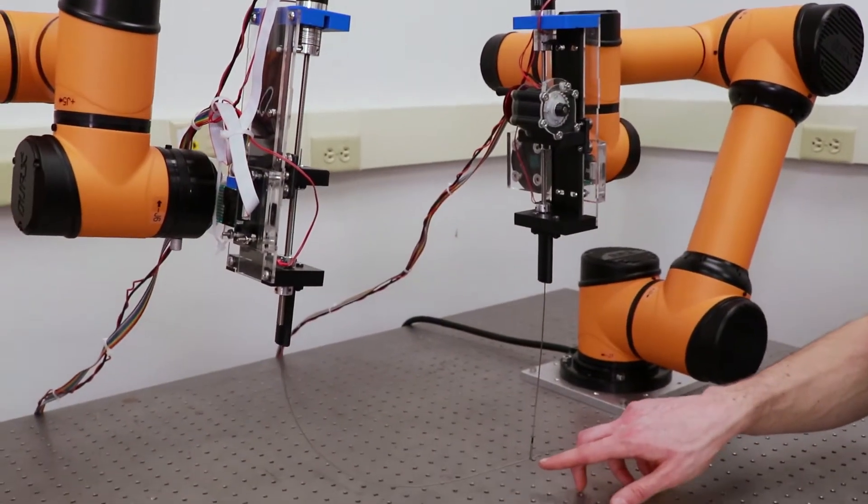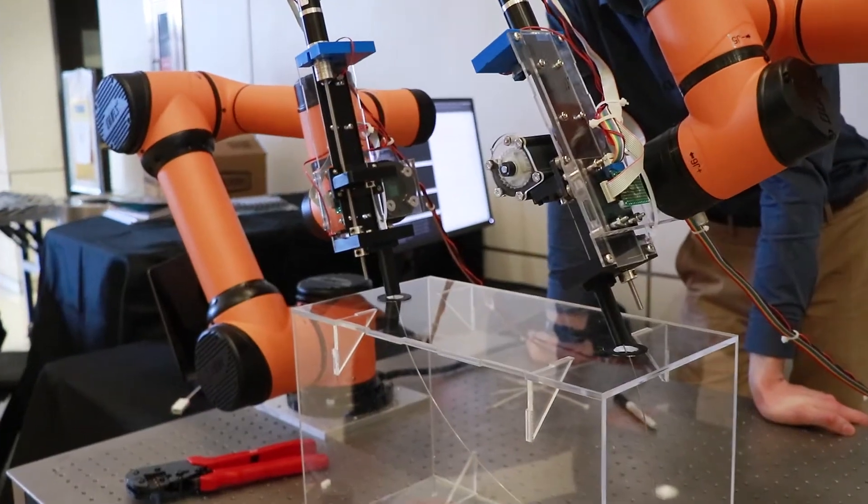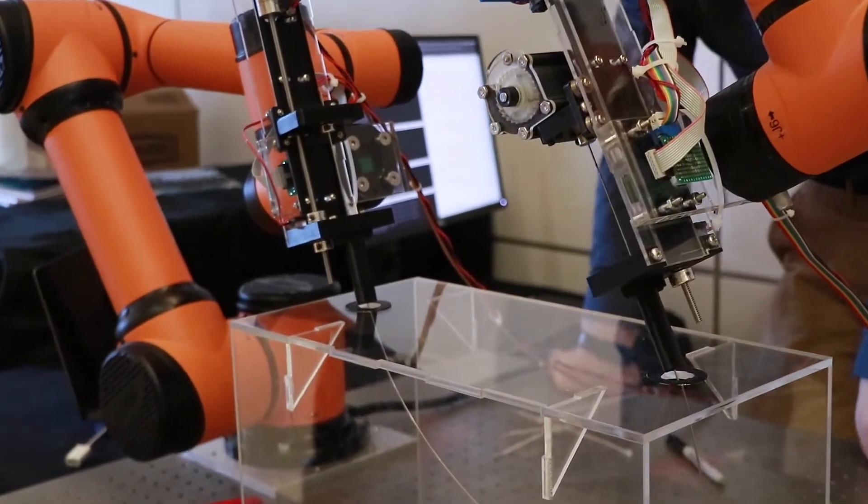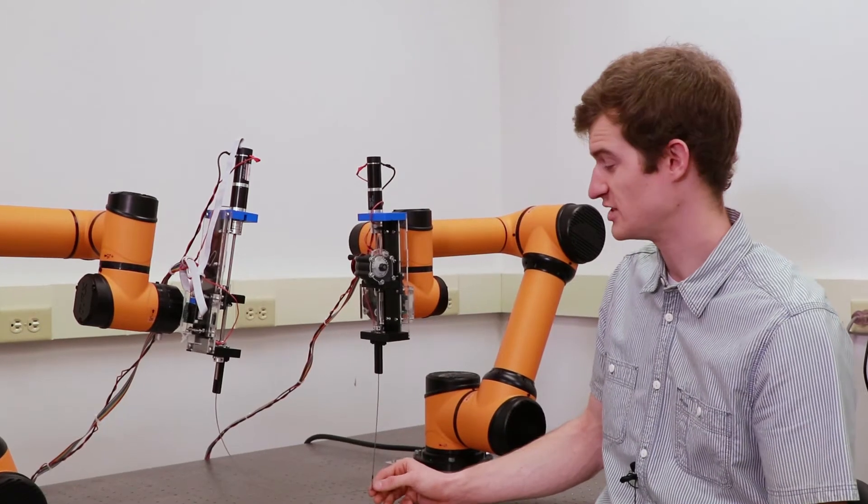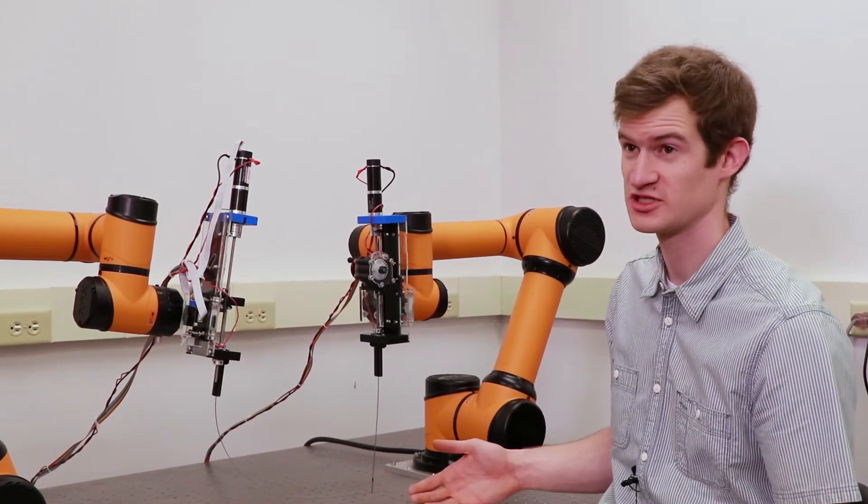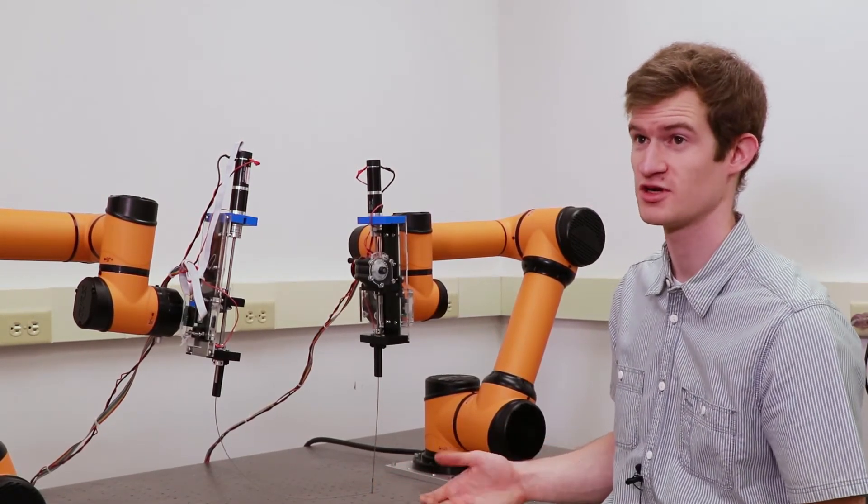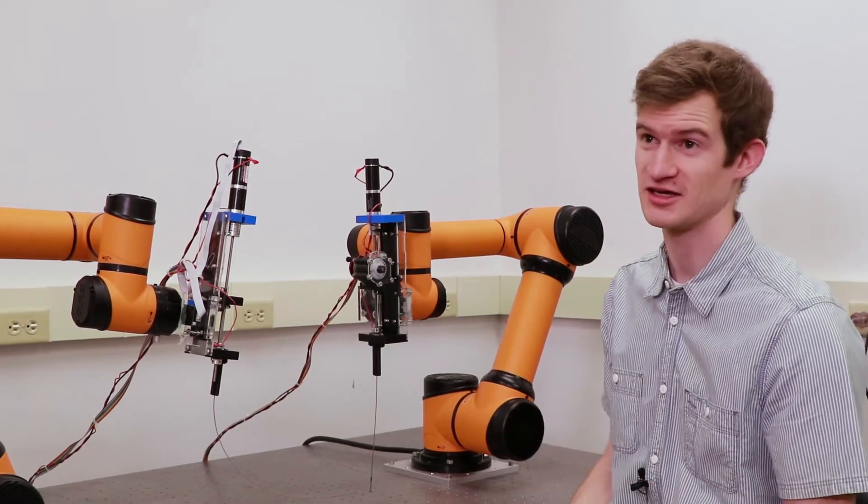Each of these tools are less than two millimeters, and anything that's less than three millimeters is considered needlescopic, which means that when you get this procedure done you don't have any sutures. You just get a band-aid when you're done, like getting a shot at the doctor.